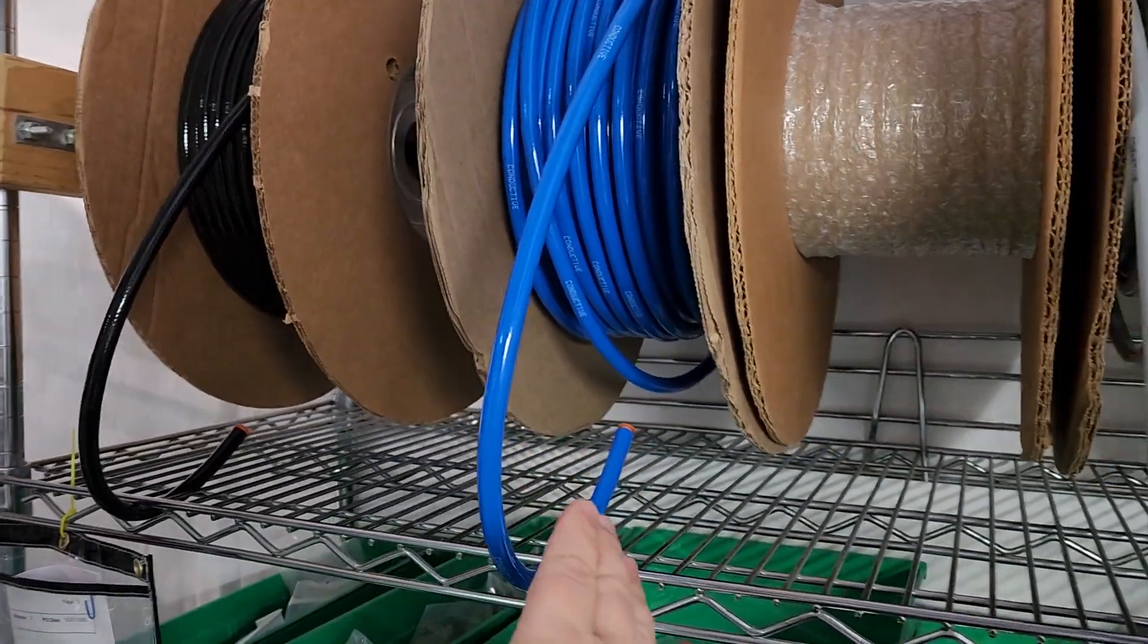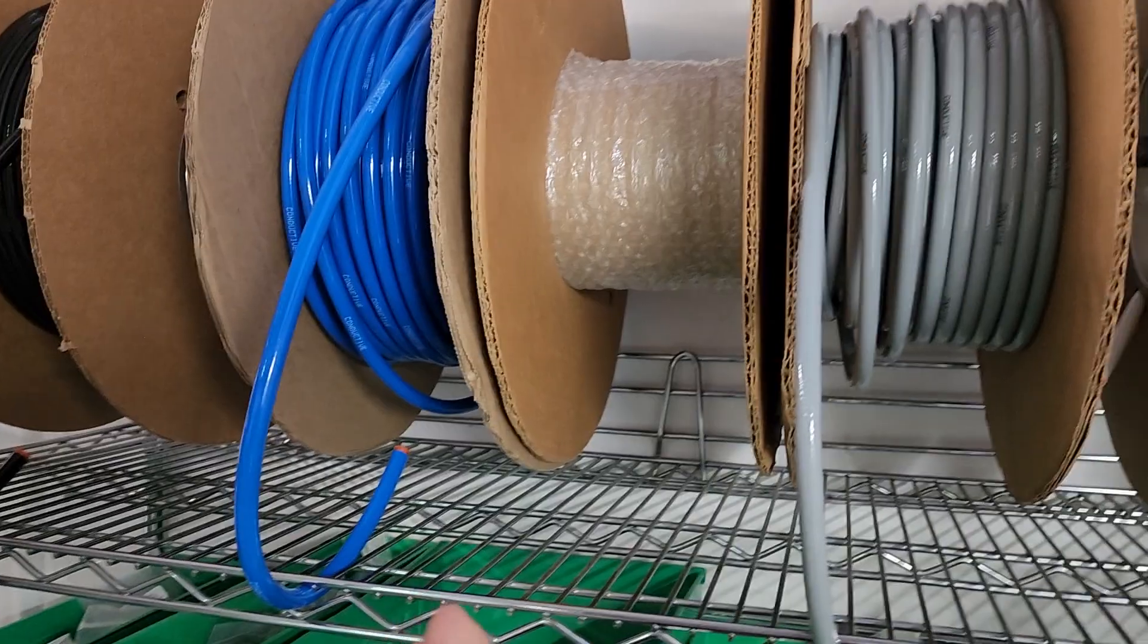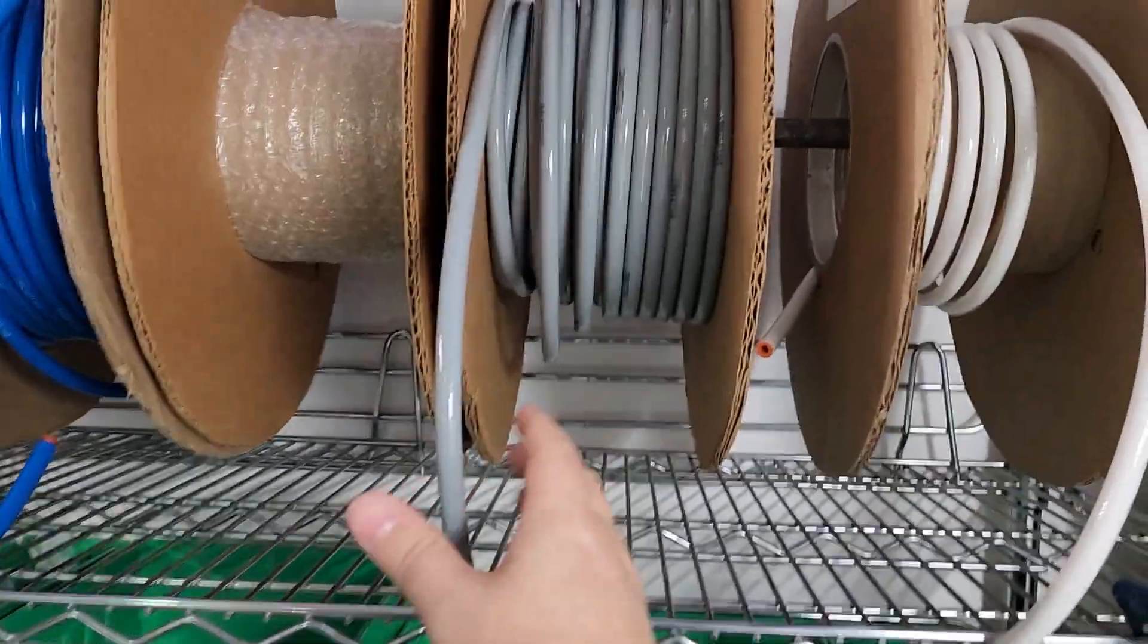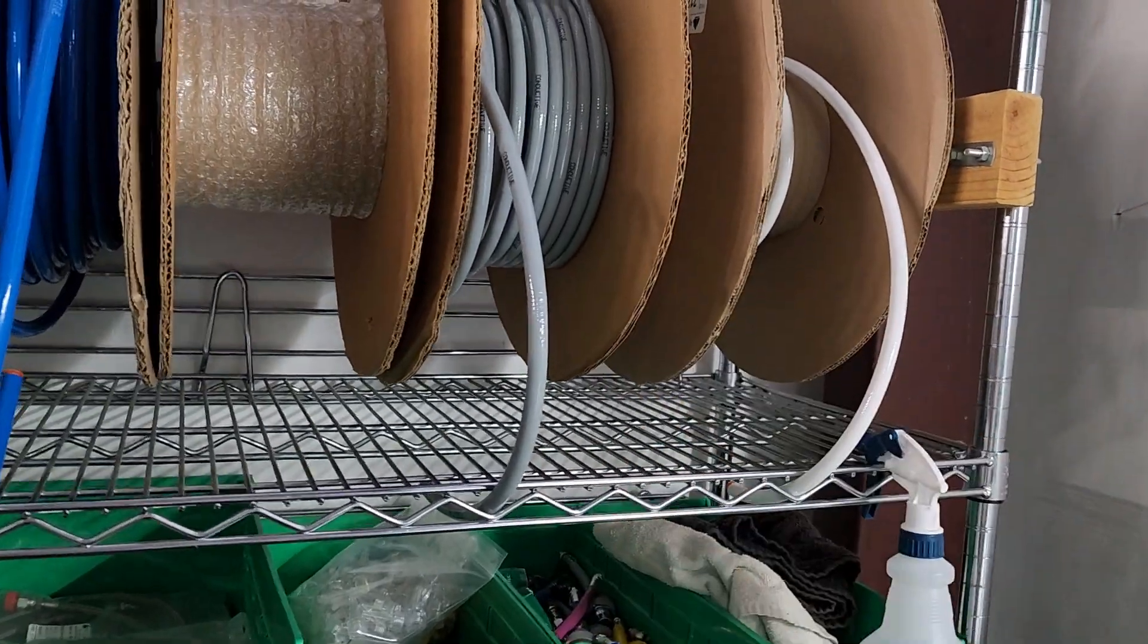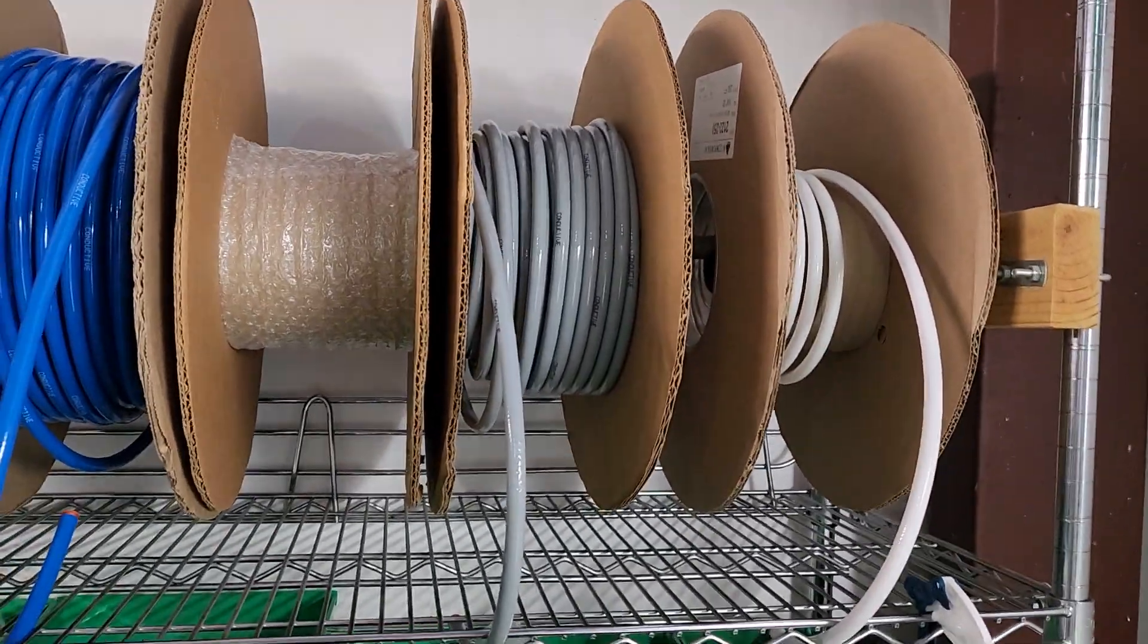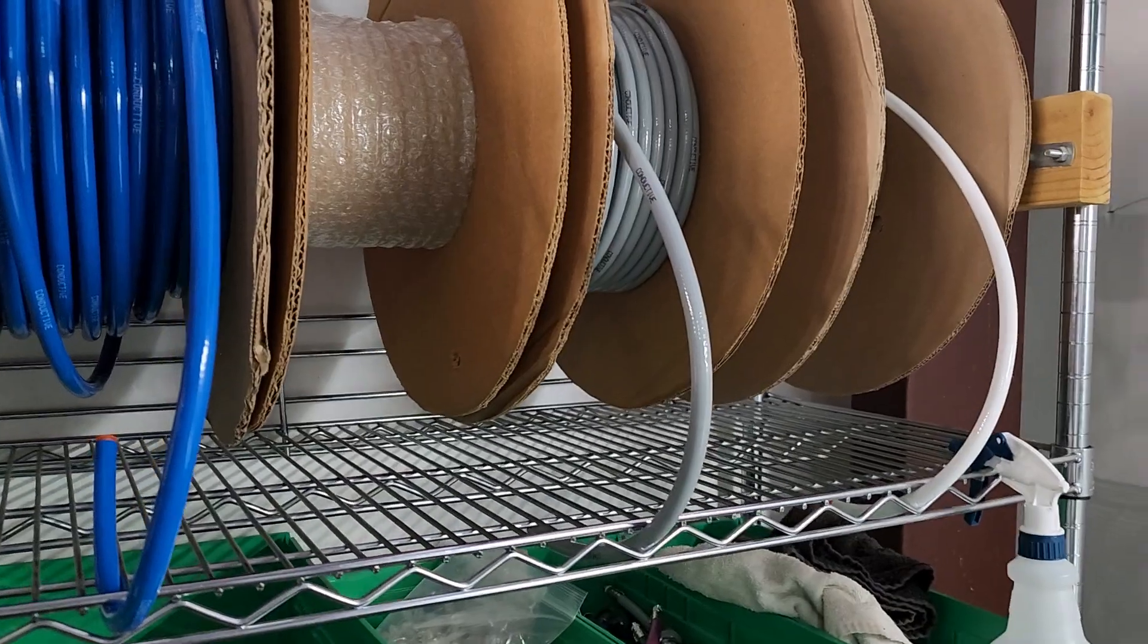Gray is a special one. It's for carbon dioxide. Carbon dioxide is used in all sorts of medical environments and it can be used as a propellant. It's often used for insufflation.